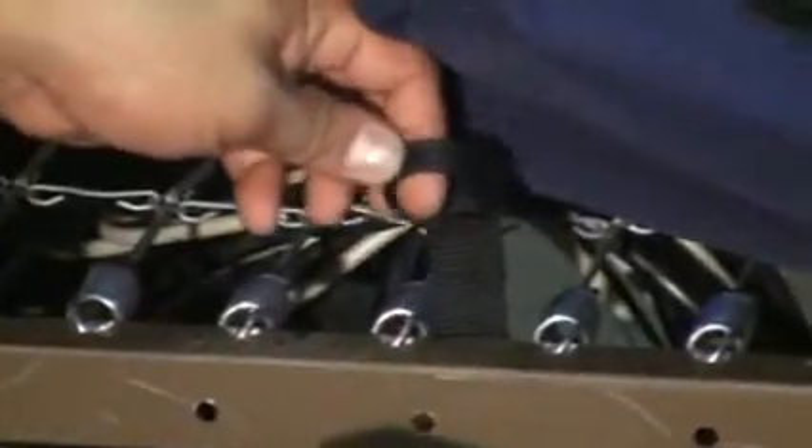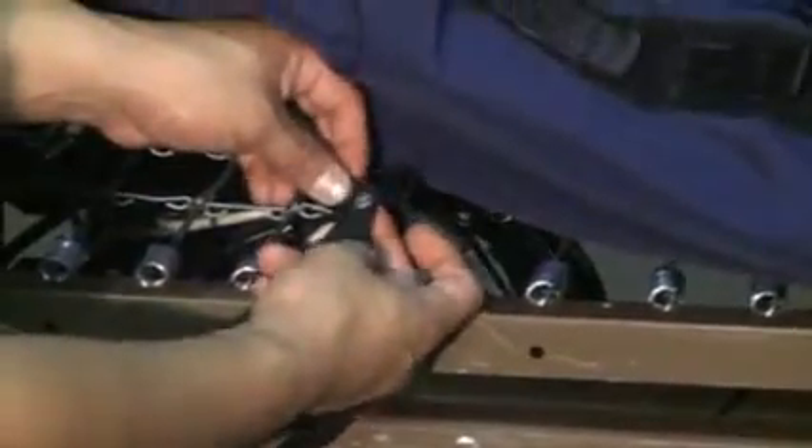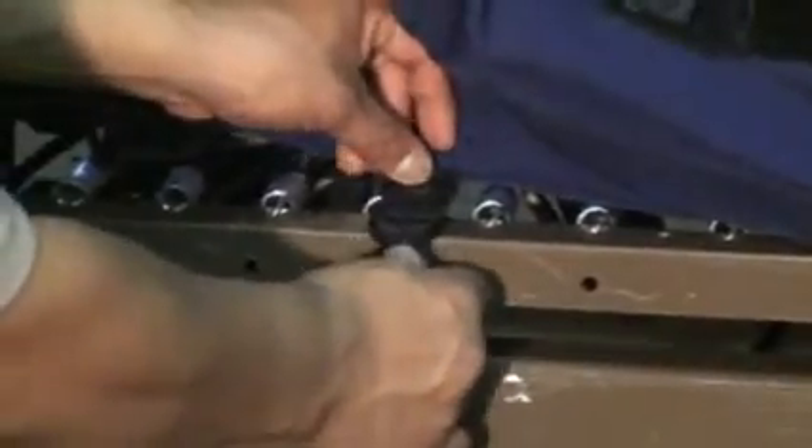You will have three loops on your strap on the bottom of your air mattress. You want to use the two bottom loops in order to strap your mattress to your bed deck. Start from the inside of your bed deck, placing the strap through and around the bed deck. Place the strap through the two bottom loops, up over the top one, underneath the bottom one, and pull until the strap has secured itself around the bed deck.